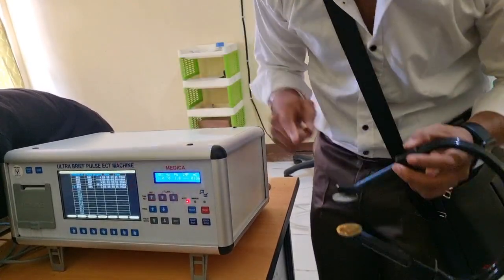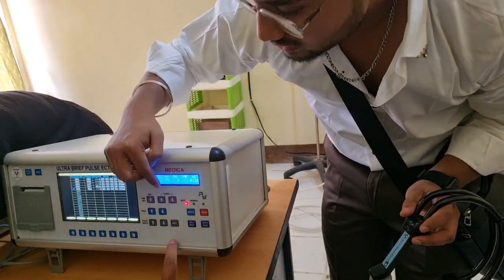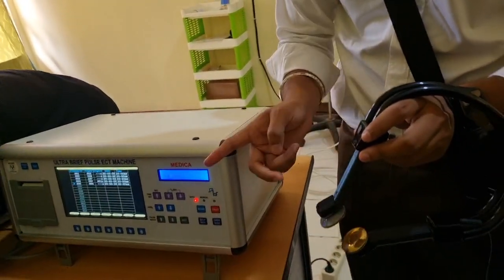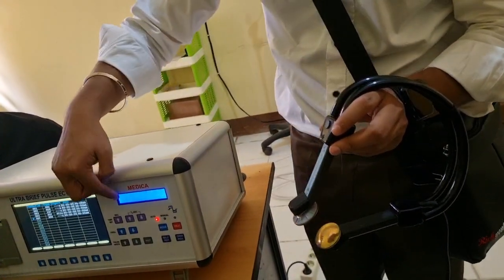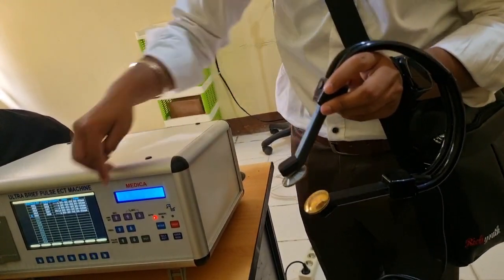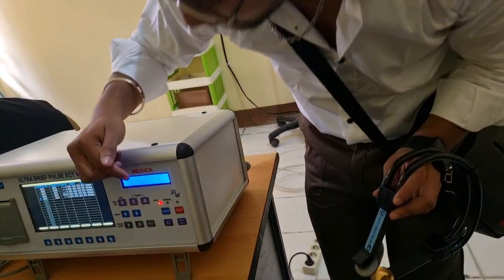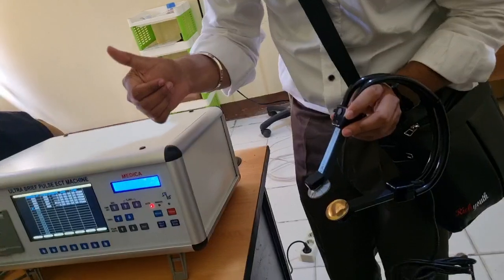Yes, it should be connected with the ECT out. What happens when we use it on auto mode: the program we set there, 1 second, 70 hertz, we programmed it, and when we push that button, it delivers the programmed current to the patient. If we selected 1 second, it will give a shock within a second, and the machine will make a beep sound. That means the current is delivered successfully.